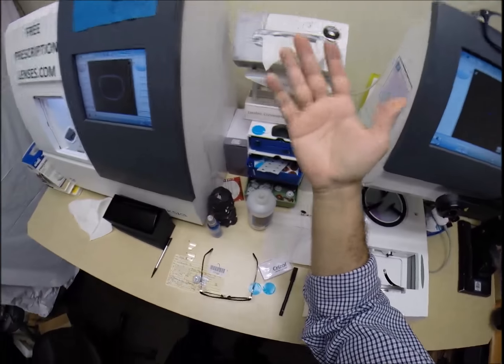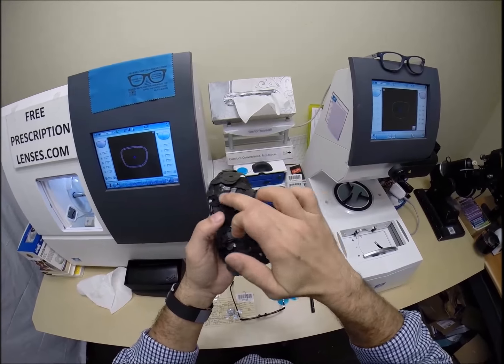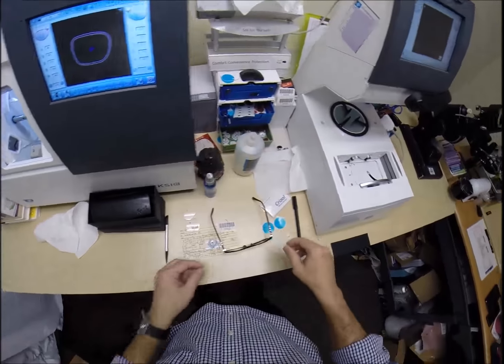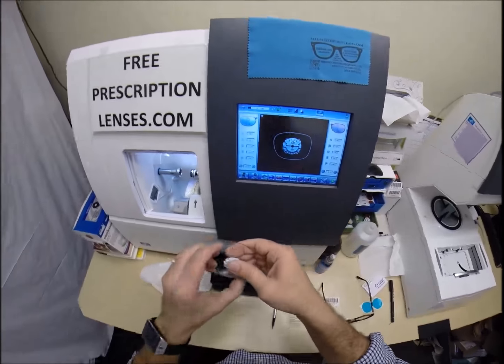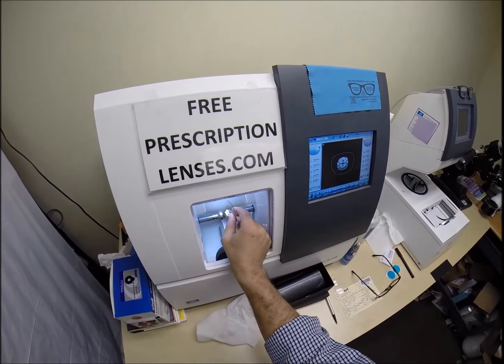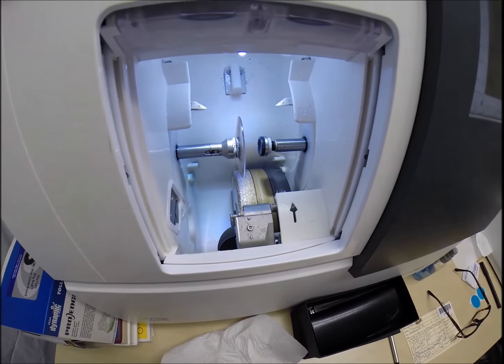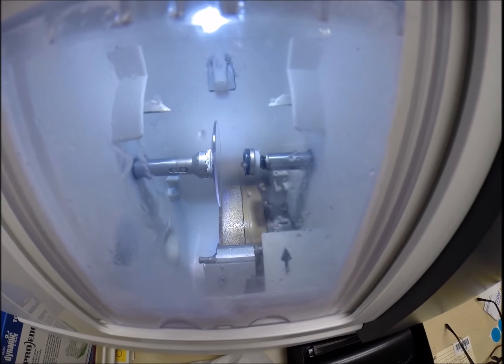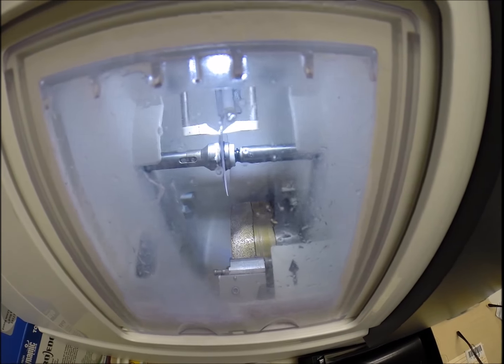Water will spray onto this lens for the last 20 seconds of the cutting cycle to wash away any optical debris. Your lenses are made out of polycarbonate, which is 40% thinner and lighter than regular plastic and virtually unbreakable. These are high-impact ballistics-grade lenses that our soldiers wear to protect their eyes in combat. They also have 100% UVA and UVB protection, as well as a premium scratch coating.